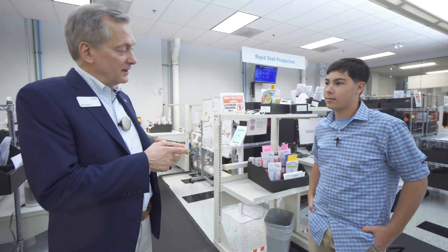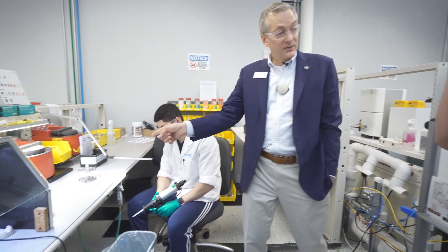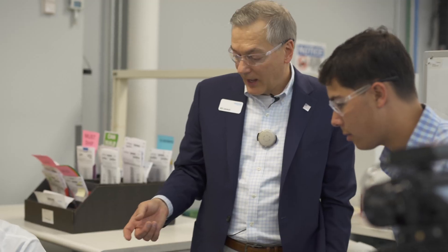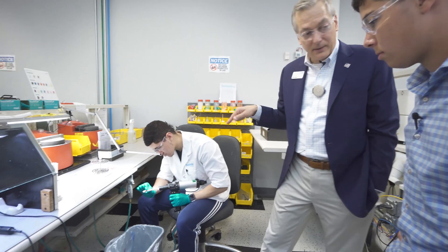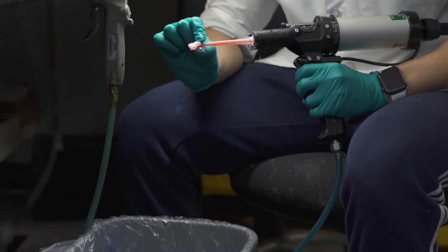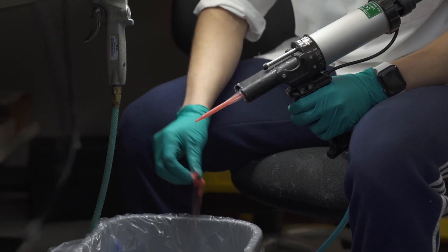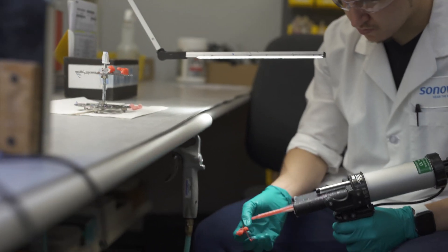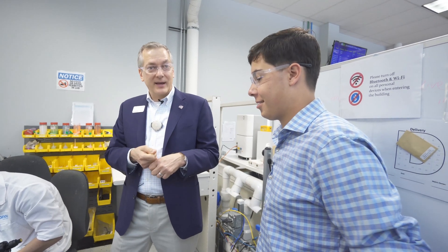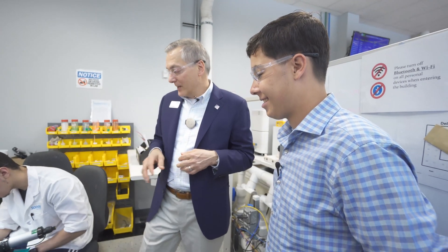For our BTE ear molds made of soft materials, we first use the 3D printer to build a cast in the shape of that person's ear. Then the technician takes a silicone pump and pumps soft silicone material into it. The next step is like cracking a hard-boiled egg — they crack away the outer shell, and what's left is the finished silicone ear mold. If we want it multicolored, we inject a little purple or other colors. If we want glitter, the technicians literally add spoon glitter and mix it in.